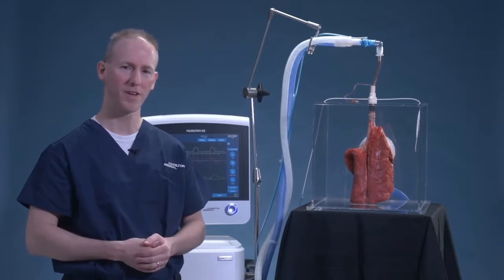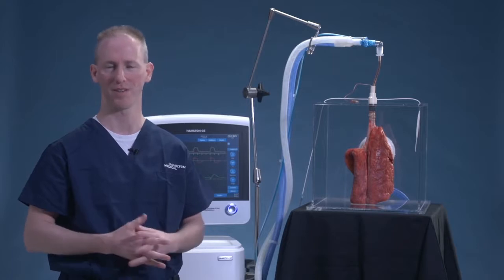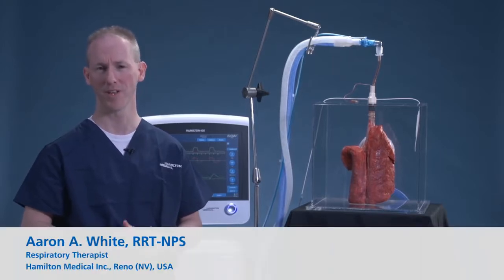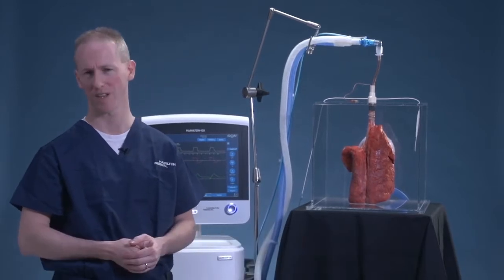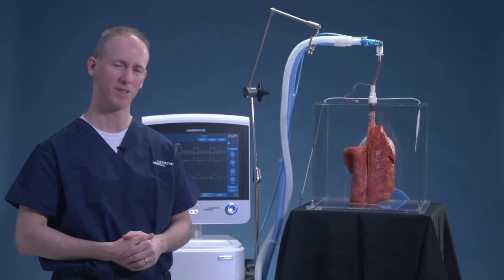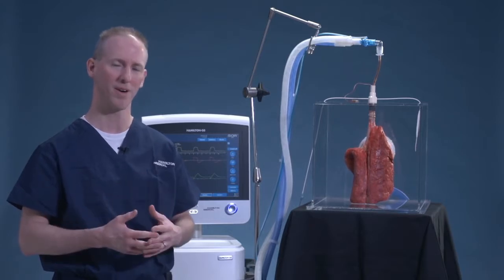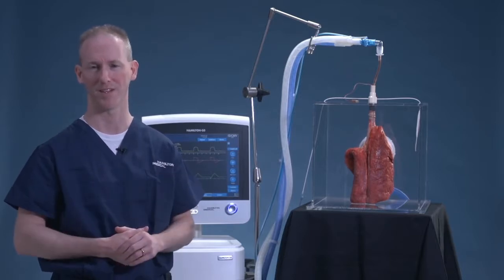On the ventilator, as we ventilate our patients, one of the things that we're most challenged by is setting PEEP in the correct way. The other thing that we're limited by as well is airway pressure doesn't always tell us where the pressures lie. Part of the pressure as we deliver the volume forward to the patient's lungs is spent to inflate the lungs. The other part is what it takes to move the thoracic cage out of the way as it accepts that volume inside the lungs.